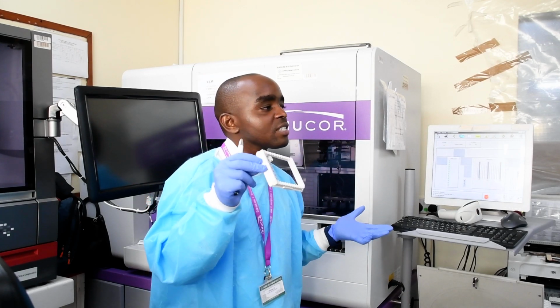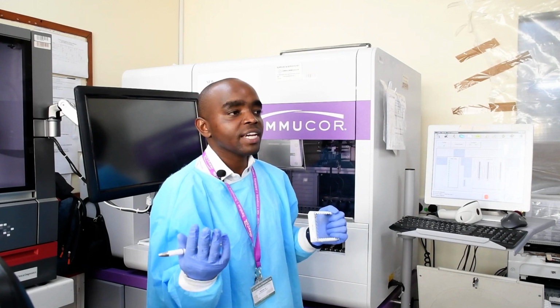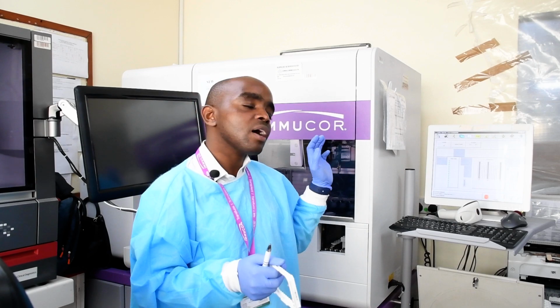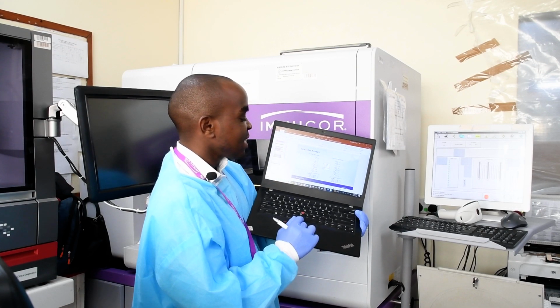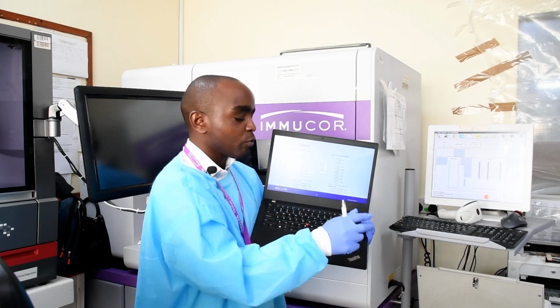So if you agree that your cutoff will be 64 and it goes beyond 128, then it means that you may not need to go to the high titer. That one, you cannot use that blood or that donor for transfusion. So that's why probably for you, you will not need to go to the high titer. So low titer IgM, anti-A, anti-B, low titer IgG, anti-A, and anti-B. That's why we have this dilution. If you can see here, 1:128 and 1:128 for both of them.